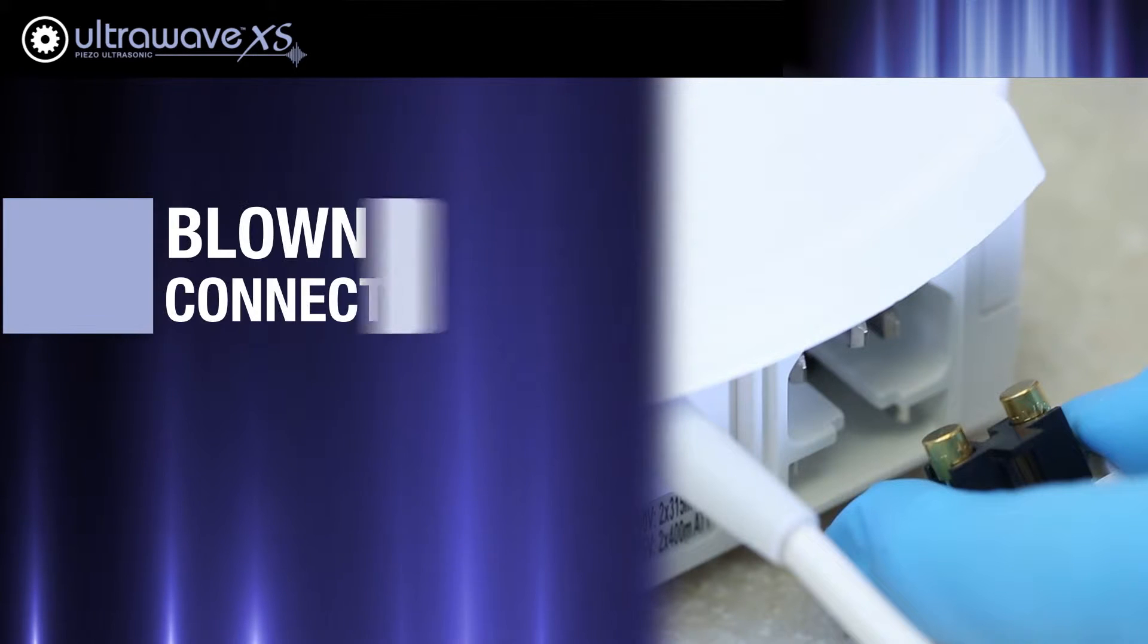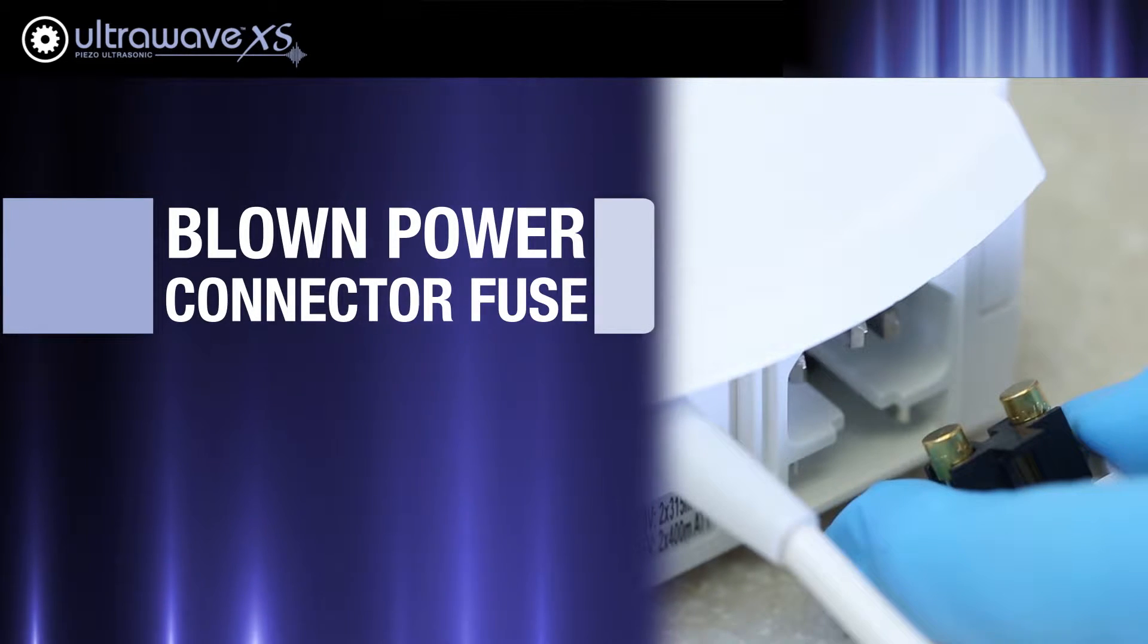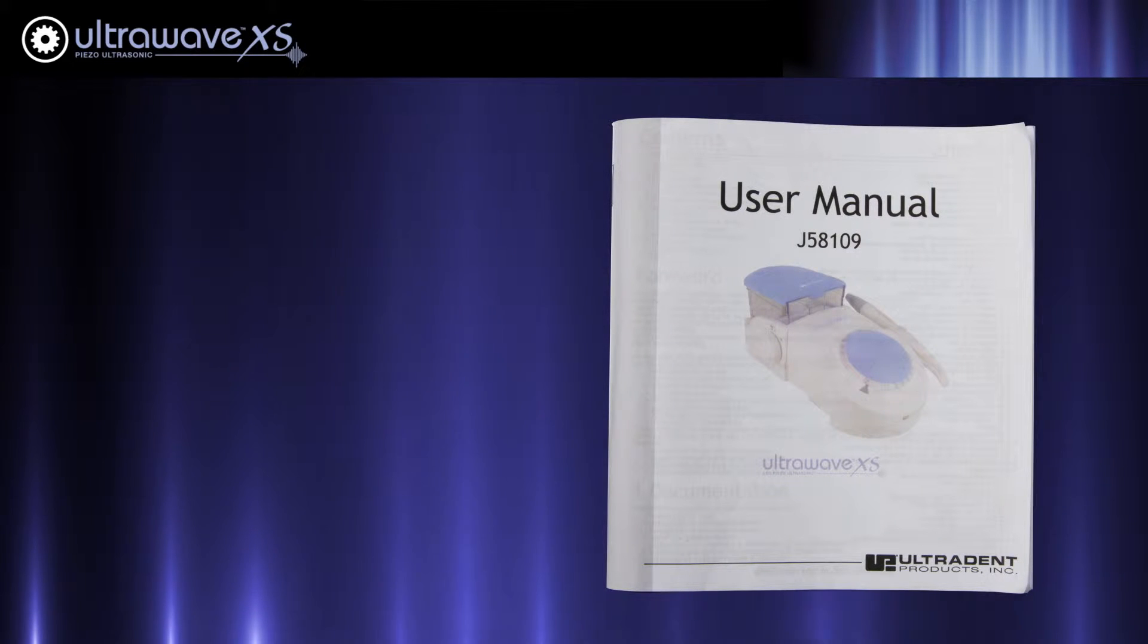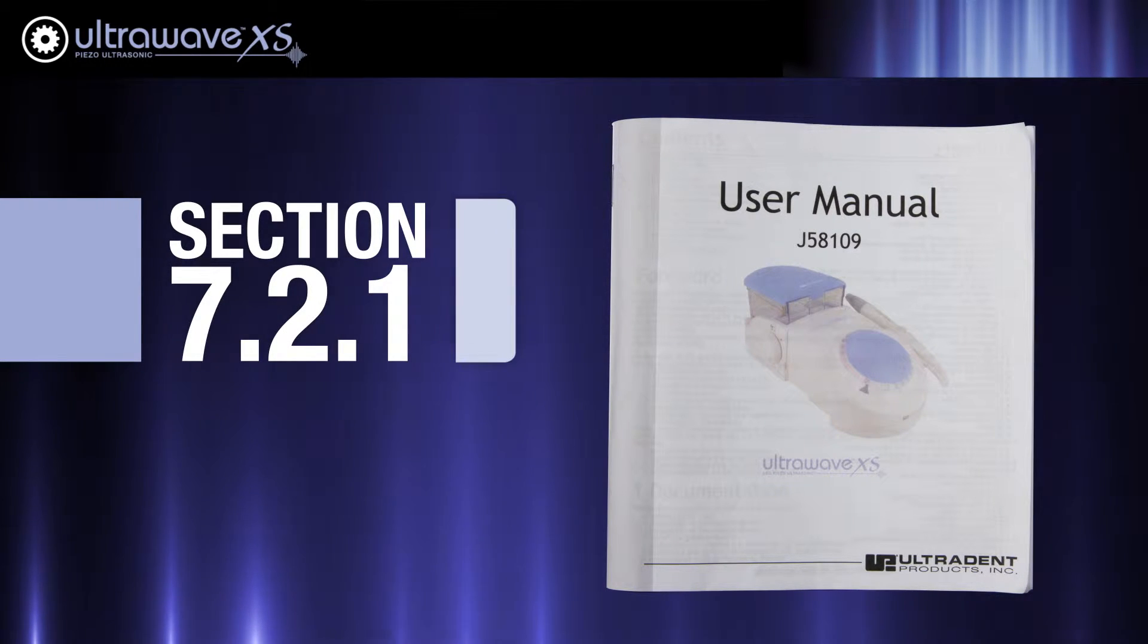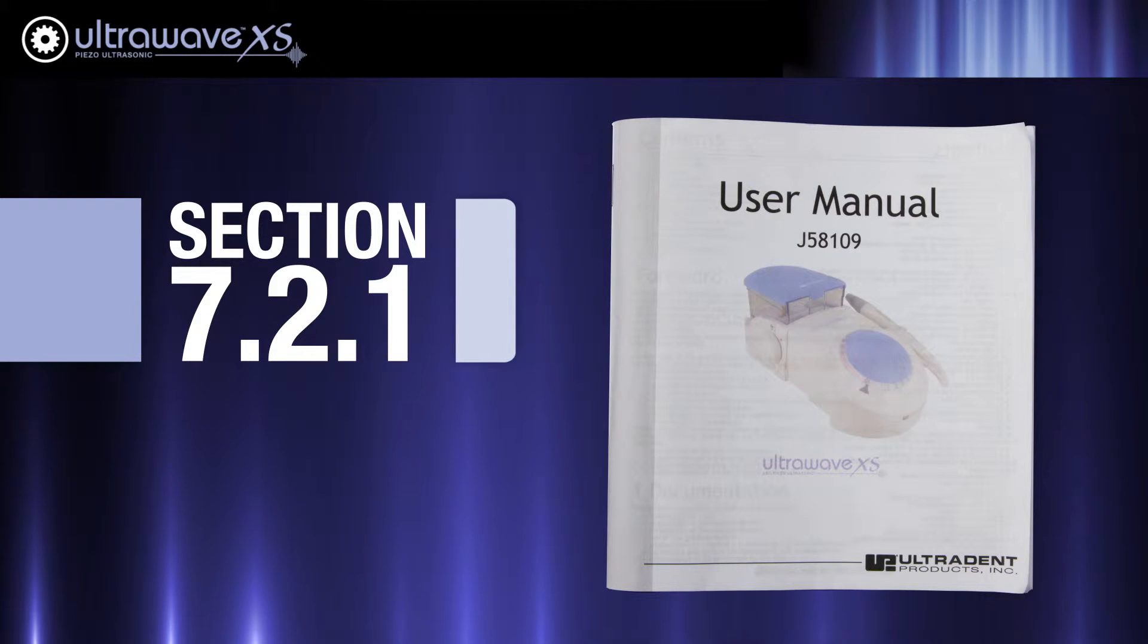Another possible reason your unit will not turn on is a blown power connector fuse. You can check these fuses and change them yourself. See Section 7.2.1 of the IFU for directions on how to change the fuse.